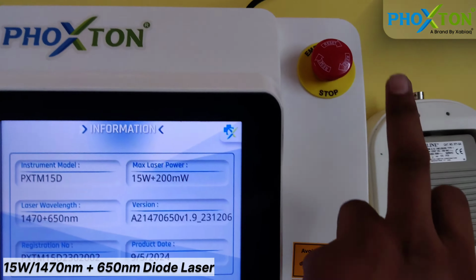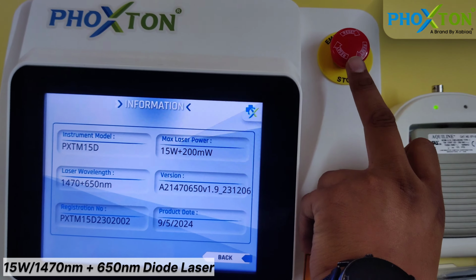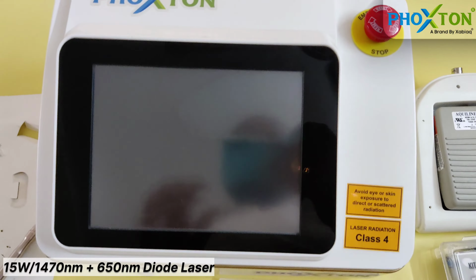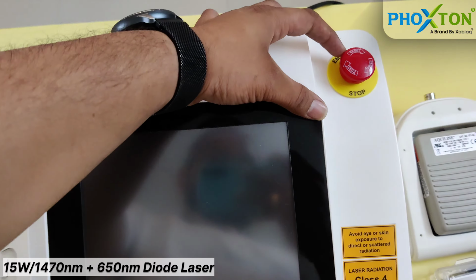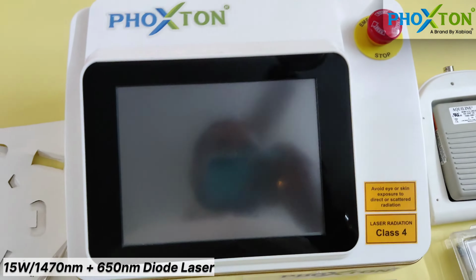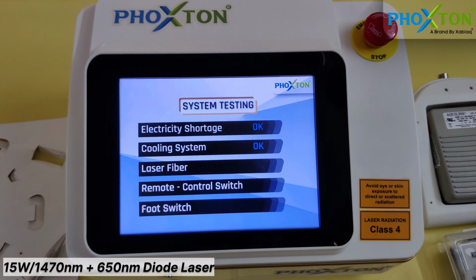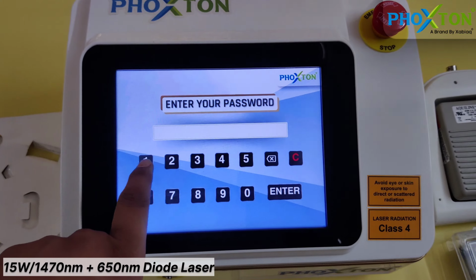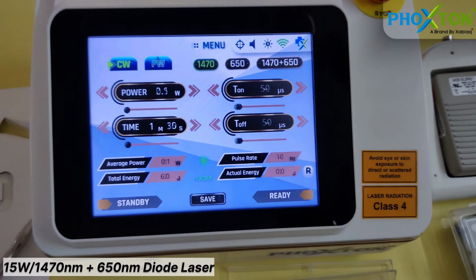This is the emergency switch. So whenever you feel like you want to close the machine or the machine is malfunctioning, just press it and the machine will shut off. Now if you want to restart the machine, just rotate this knob and the machine will restart. So again there are some security checks. The machine will come on with the password, 1 2 3 4 5 6 is the password.